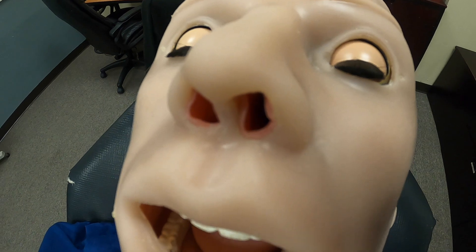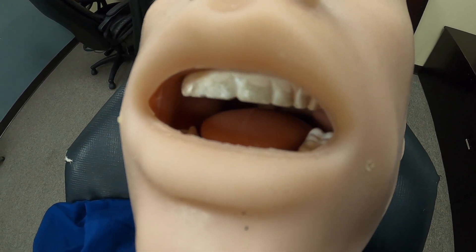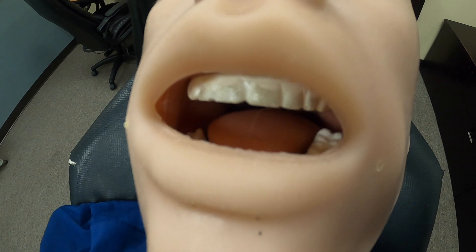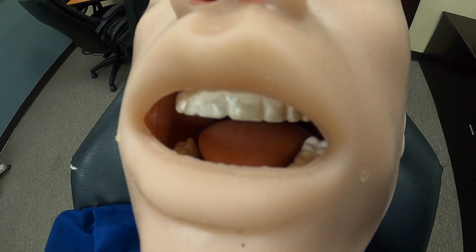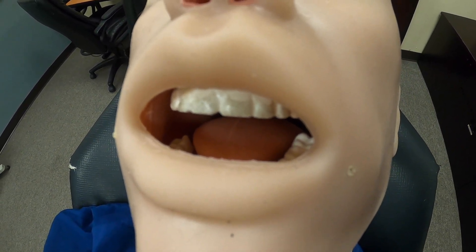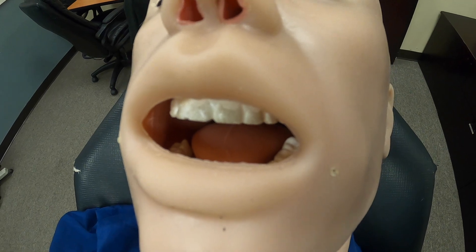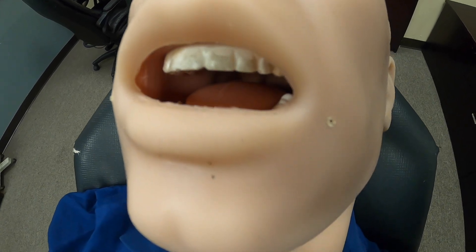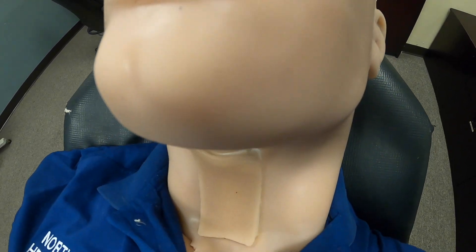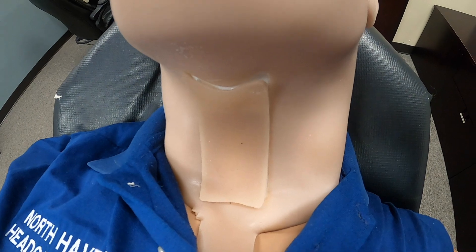Working our way over to the ears, we can represent CSF by the mannequin producing fluid from the ear canals. Moving to the nose, NPAs can be inserted in either side. Moving over to the mouth, OPAs can be inserted, it can represent tongue edema, and can be fully intubated. Working our way down, it can be surgically cric'd.